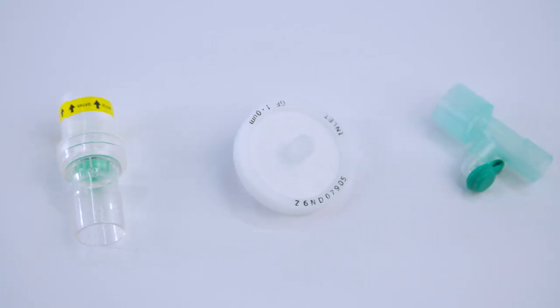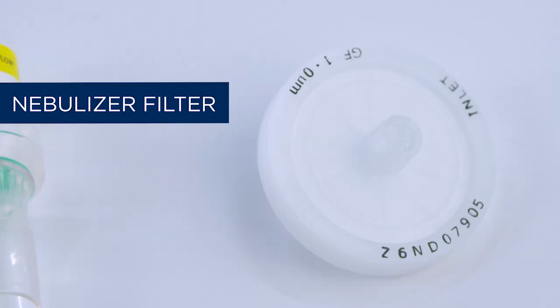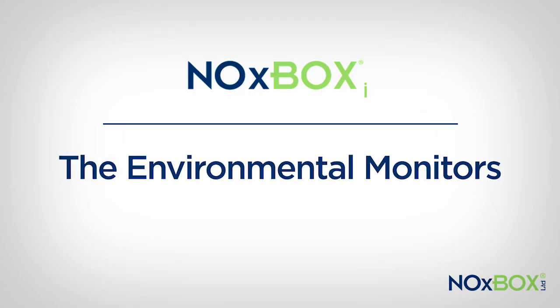Additional optional consumables include a one-way valve for HFO or high-frequency oscillatory ventilation, a nebulizer filter for sampling gases during nebulizer use, and a manual bag sample adapter for sampling if you are manually bagging.